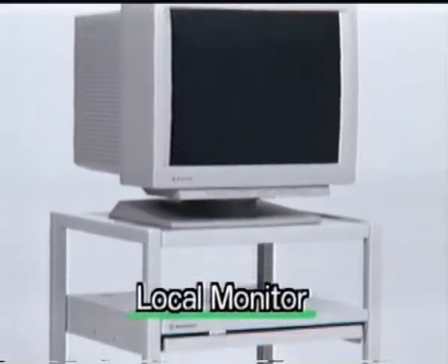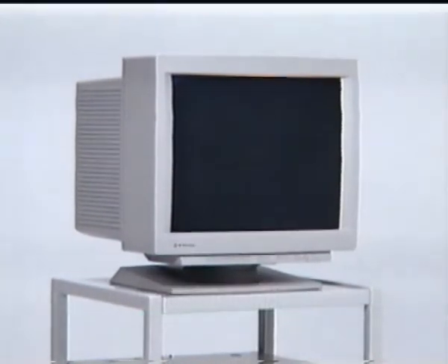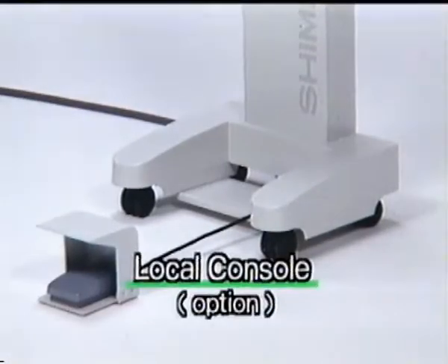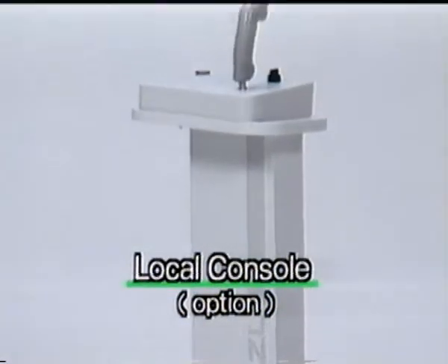Including this large 21-inch monitor for evaluating the puncture location in the examination room, Shimadzu's versatile multimodal system is complemented by user-friendly hardware that greatly facilitates examinations, such as a local operator's console with controls for snapshot image storage.